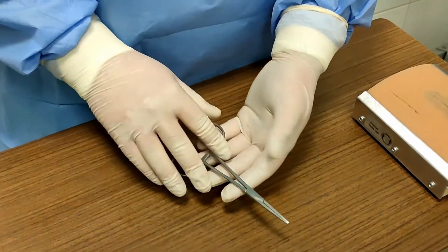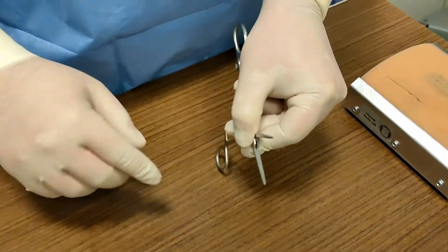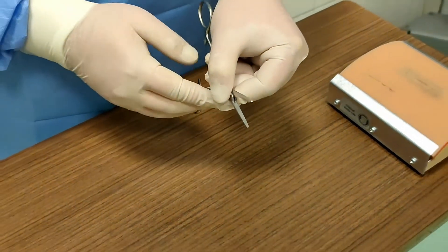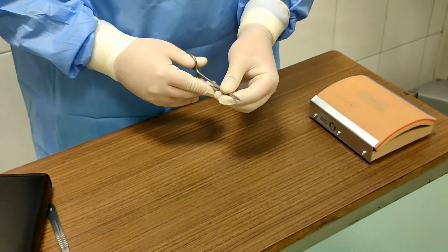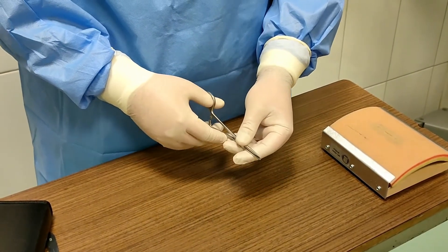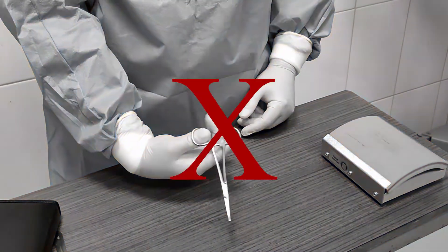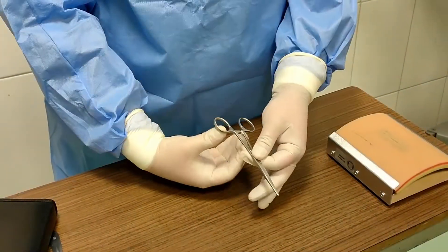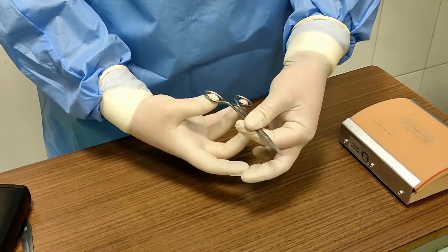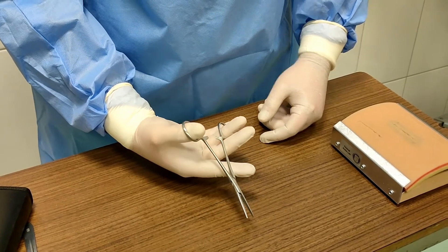Here we have hemostatic forceps. They tend to have straight edges which help us to control the bleeding from any kinds of blood vessels. Finger positioning is almost the same as with other forceps, and again we can use the index or middle finger for better control. In case of bleeding, we use this instrument to compress the tissue or the vessels by locking the ratchet.